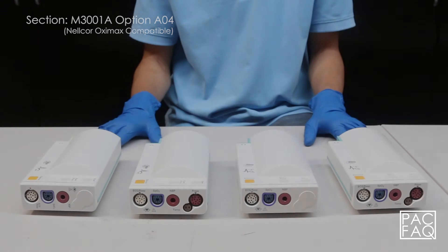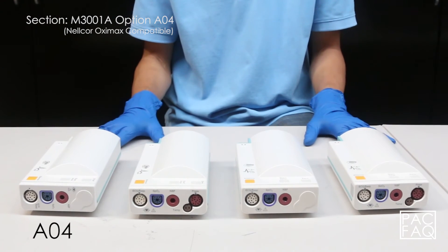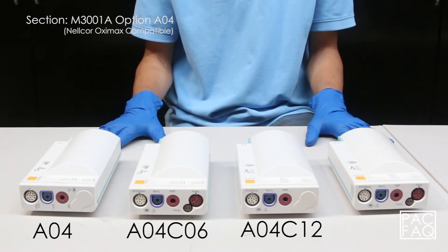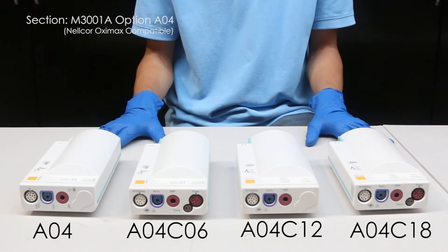In section M3001A module option A04, Nellcor OximaX compatible, we will talk about the options and parameters that come with each unit. First we have A04 standard, A04 C06, A04 C12, and A04 C18.